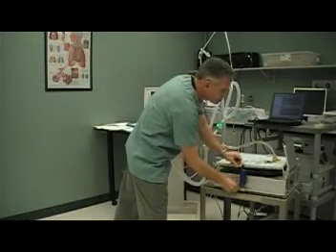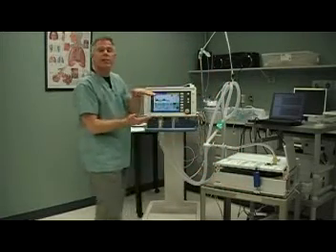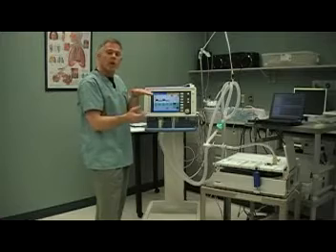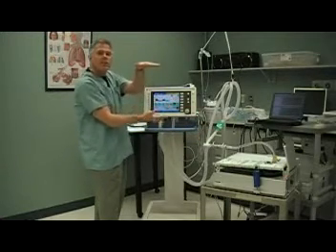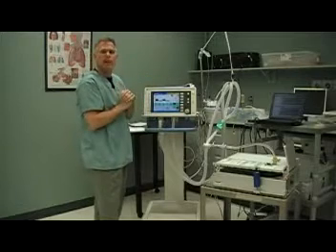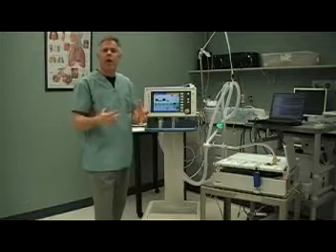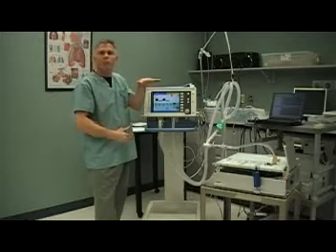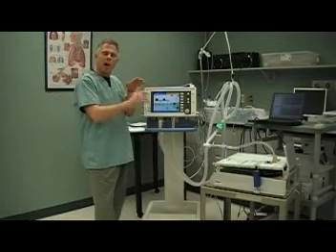As my patient's lung compliance decreases, or the lungs get stiffer, the ventilator — over a minute or so — will measure that change in compliance and increase the pressure control level to meet my volume target. All other elements of the mandatory breath are similar to pressure control: I've got a set pressure control, flow starts high, declines, and it's time-cycled.